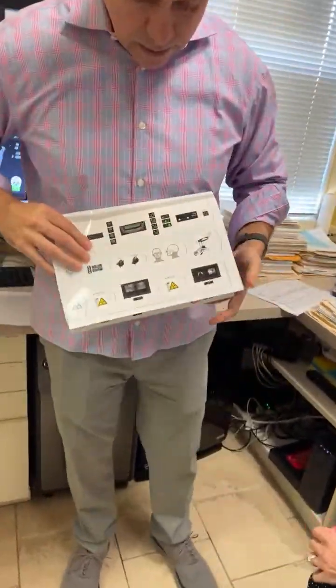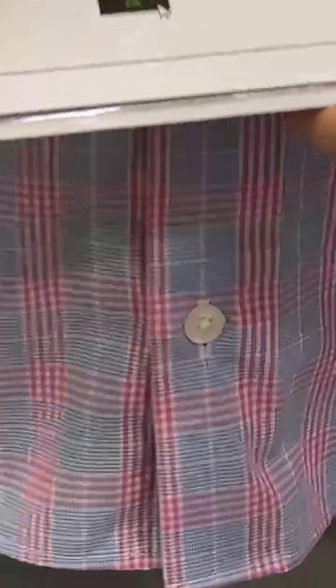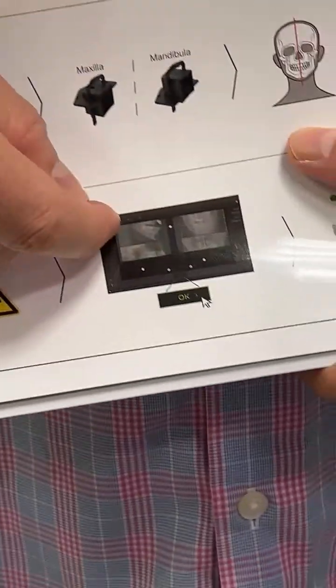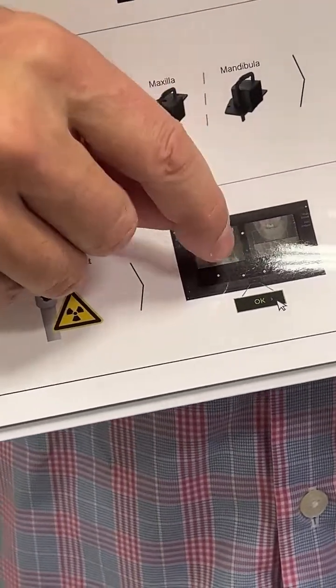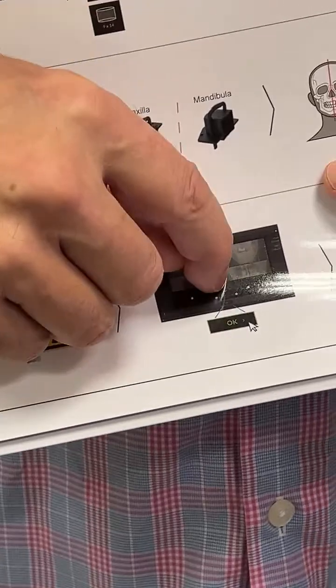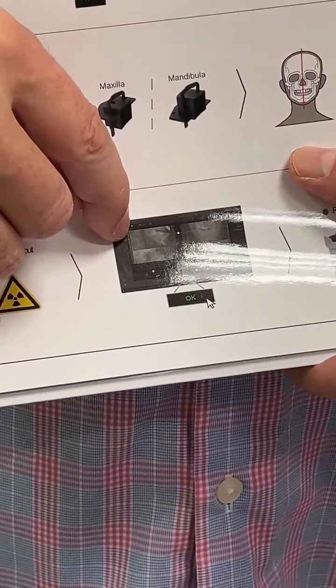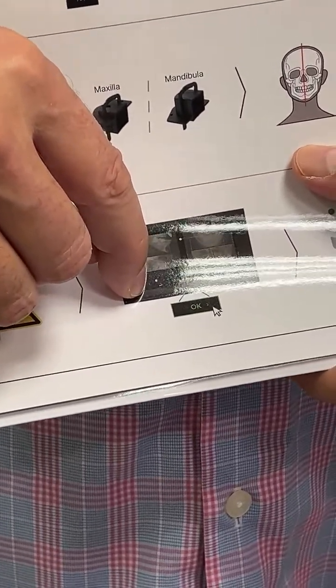So right here is what I'm talking about. This is what you're going to see right here. That's your lateral and frontal. It's hard to see because it's so small, but there's a line that comes across right here, and it has an arrow up and down, and you'll take your cursor and drag it up or down. So you might say, that's too much height. What am I doing all that for? Let's drop it. Let's go down a little more. Okay, now that's what the doctor wants.